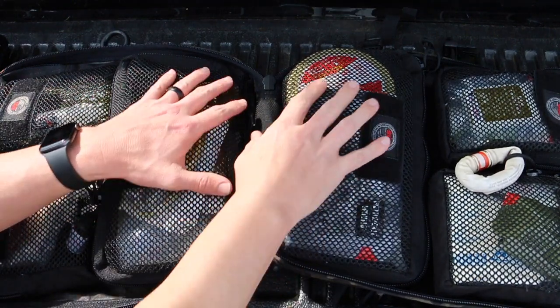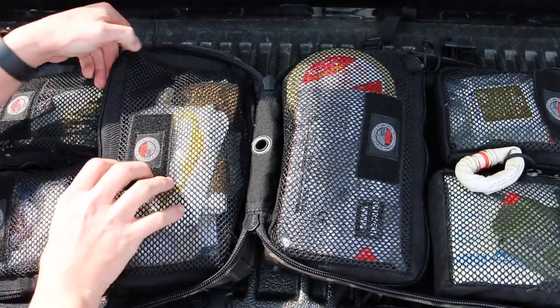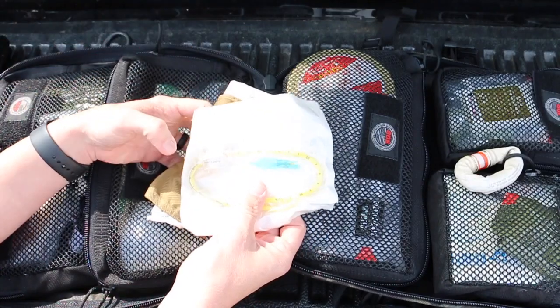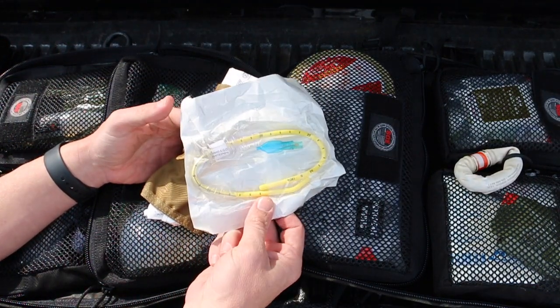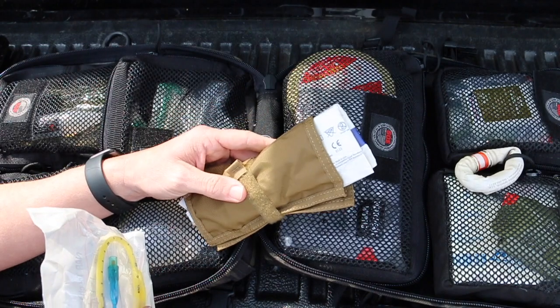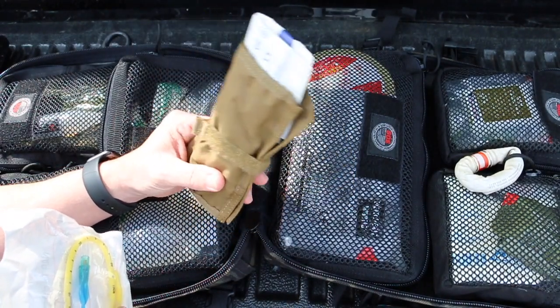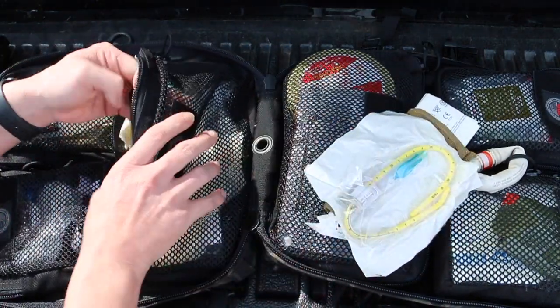These two pouches are for my airway and breathing. This is a Bougie — it goes with my Cric kit. If you're familiar with using a Bougie to emplace ET tubes, this one is for a cricothyrotomy, same concept. This is my NAR Cric kit. I've had plenty of training — done it on cadavers, simulators, pigs. I've never had a chance to Cric in the field. Hopefully I don't. Hopefully this stuff just expires.